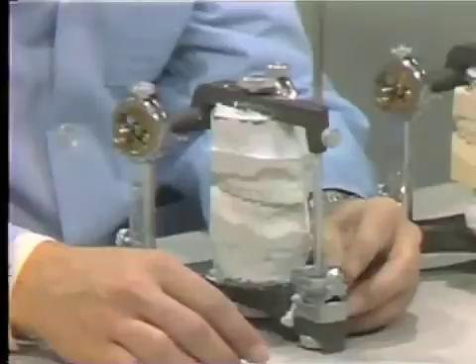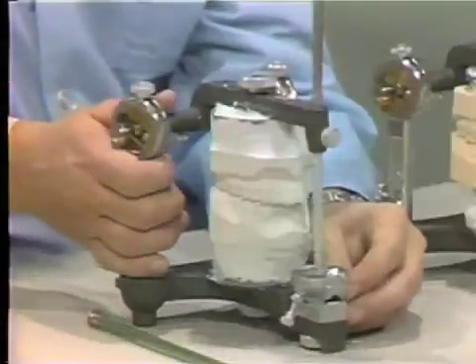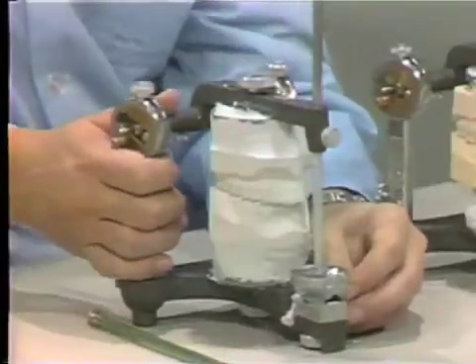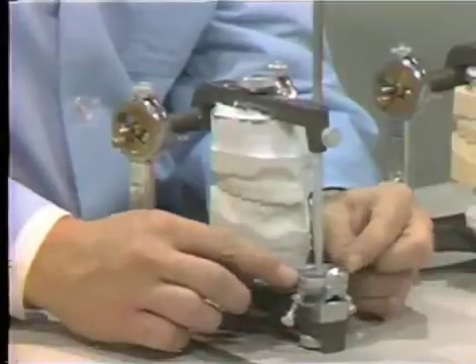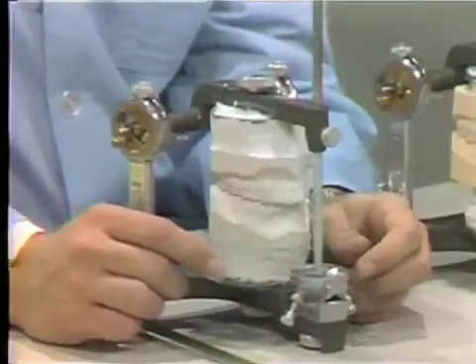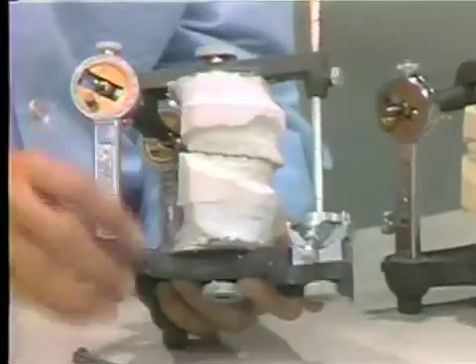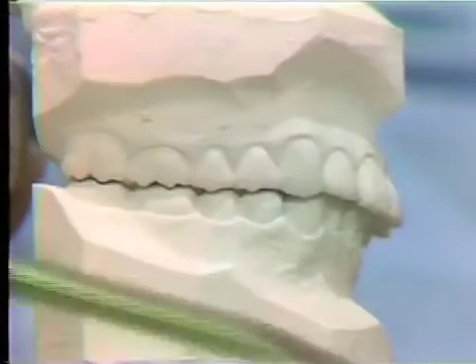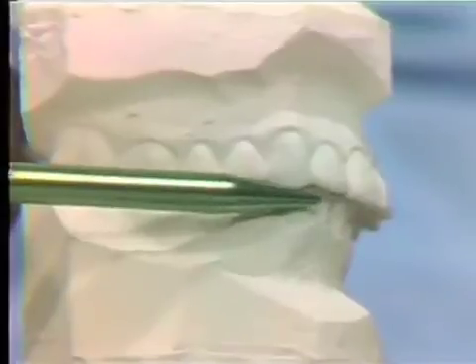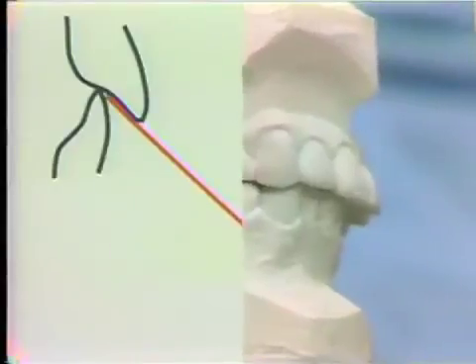First, we would have the case where the incisal guide table could accept the relationship in the protrusive excursion. About 99% of the time in the lateral excursions, we can duplicate by raising the lateral wings of the incisal guide table. However, in the protrusive excursion, it is sometimes difficult. We may have a case such as this where the incisal relationship, or the relation of the incisal edge of the lower incisors to the lingual surface of the maxillary teeth, is a shallow angle.